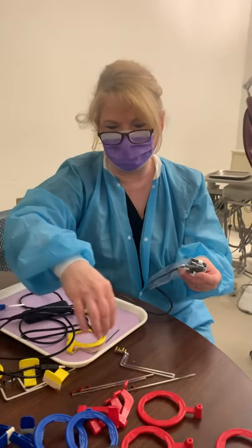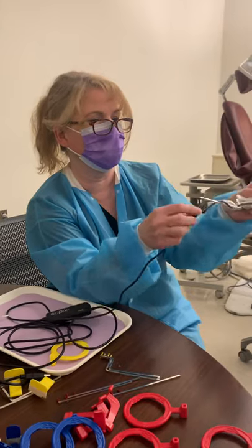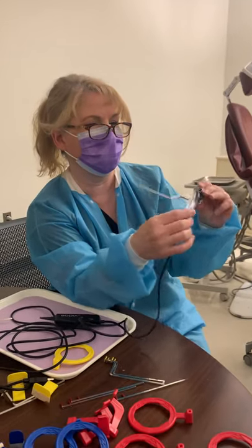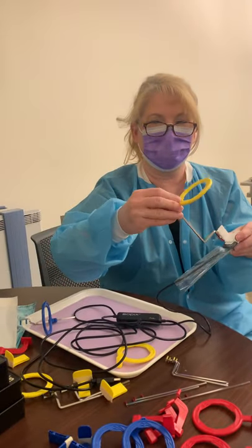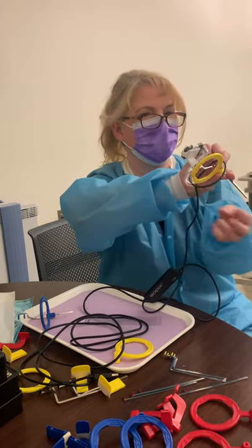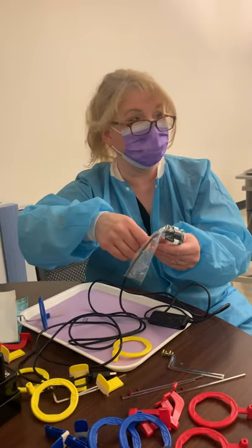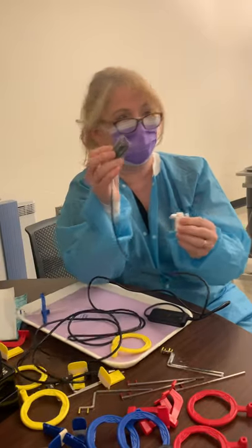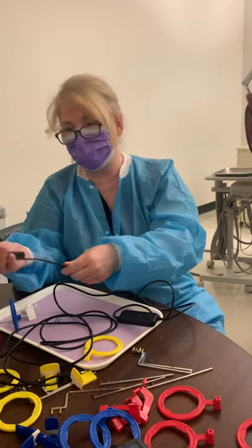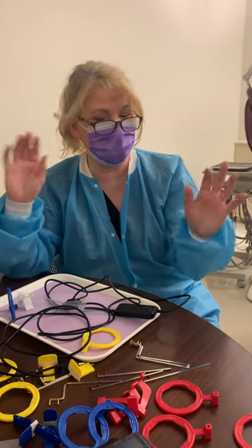The PSPs are nice and thin just like film, whereas the sensor is much bulkier. You'd have to put this in the patient's mouth with this cord hanging out — don't get the cord in your way. A lot of times we'll wrap the cord around the bar so it stays out of the way, and then you can take your shots without the cord getting past your ring and into your viewing area. Our point today is to get you started with radiology and to have you understand infection control. If the barrier is ripped or torn, put a new one on. When finished, wipe everything down with Cavi wipes, set it aside for three to five minutes to dry, and then put it away.